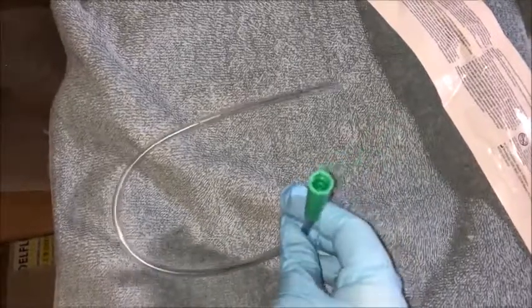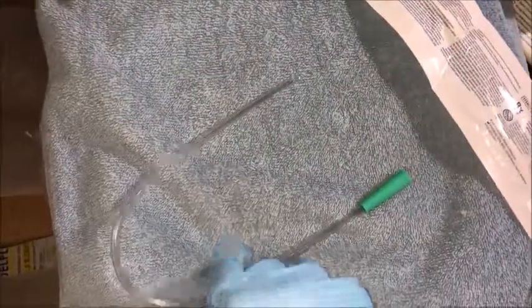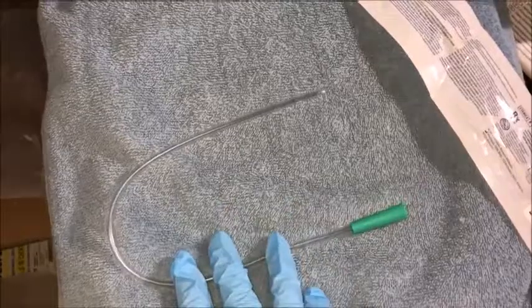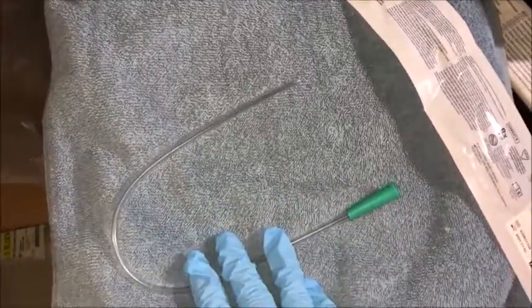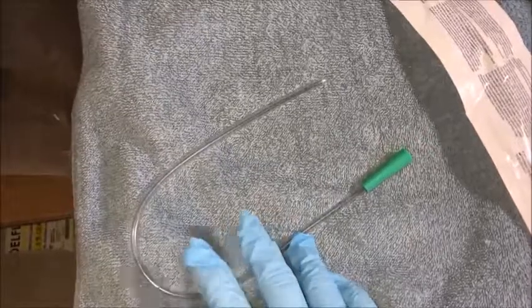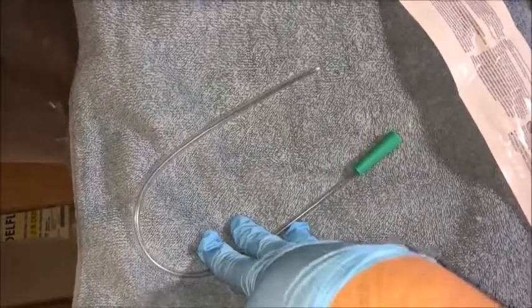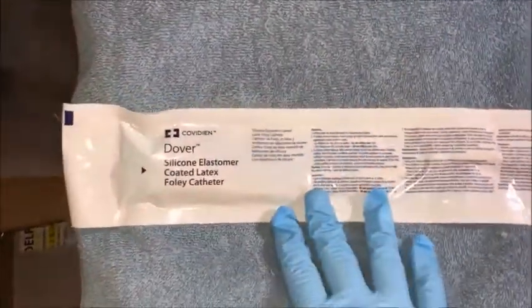Okay, so this right here is actually a straight cath. As you can see, it's shorter — this is the end of it and this is what would be inserted into the patient. These are just going to be inserted and then removed; they're not going to be left in place. It's basically something to help if the patient can't urinate for themselves — maybe they're unconscious or something like that and you need a urinalysis. This would be a way to do that without having to insert a Foley catheter.